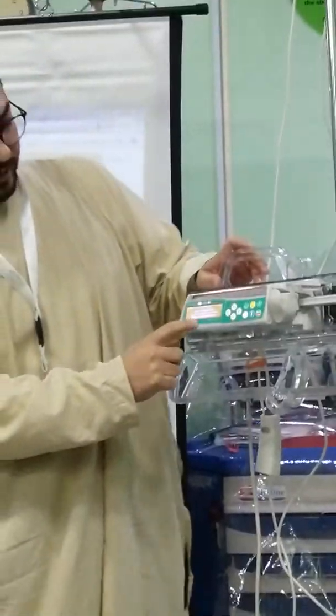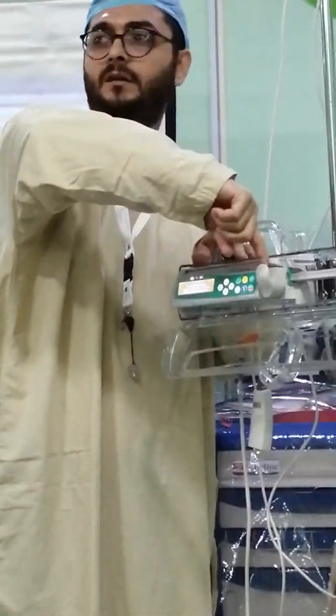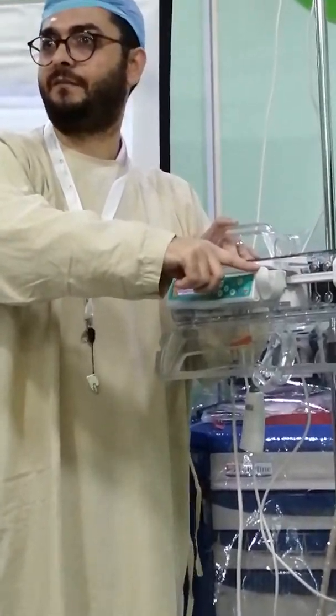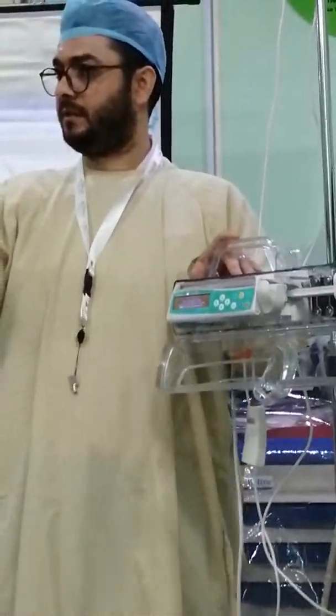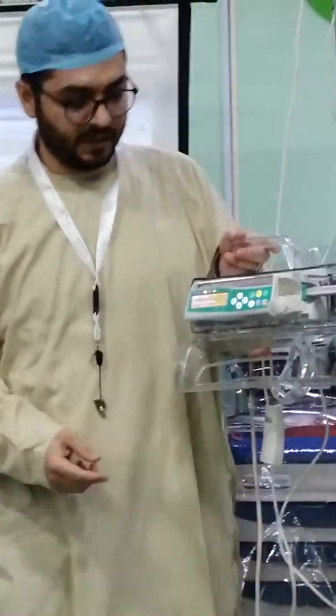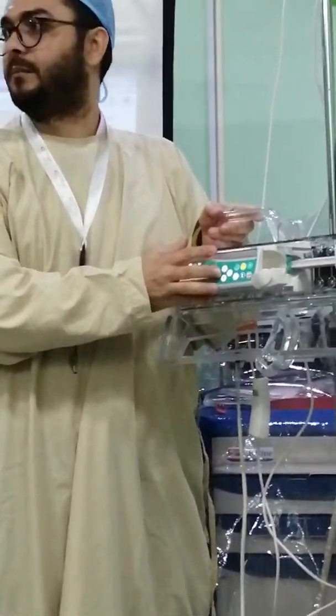It is actually safer for such drugs because there is no chance that you give an unintended bolus — whatever happens. So after the drive opens, the pump will ask you to open the syringe holder. The syringe holder is this one — it holds the syringe. This one will open automatically; this one you will have to open by hand. You just pull it toward you and twist clockwise — it will stay open like this. Now it says 'please insert syringe.' You just have to follow what the pump says.